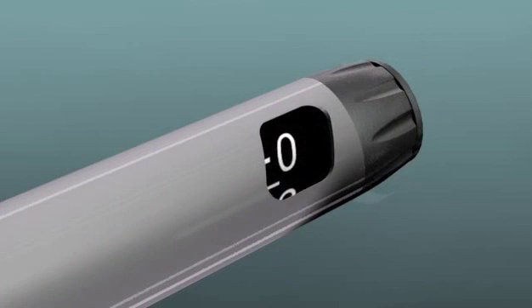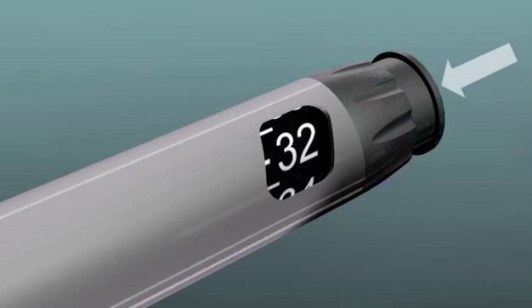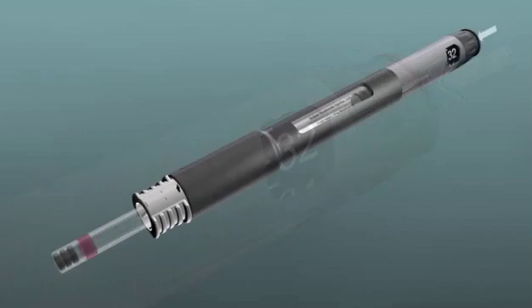The Onset Mixing Pen has a precision volume dial for dispensing solution at a microliter level.